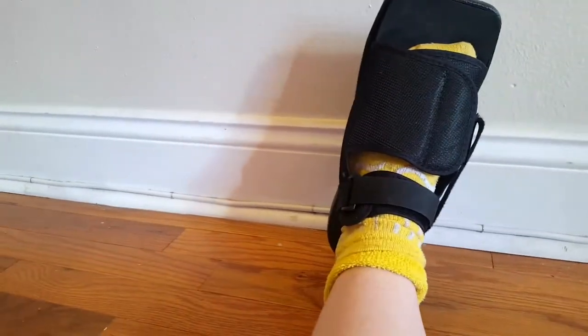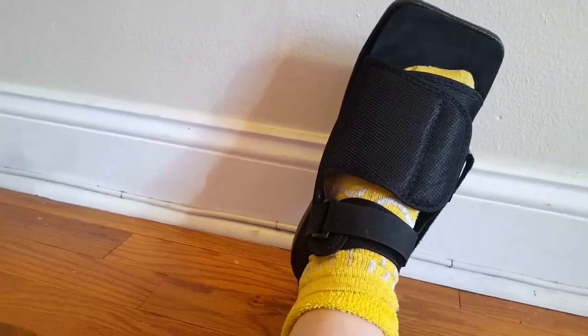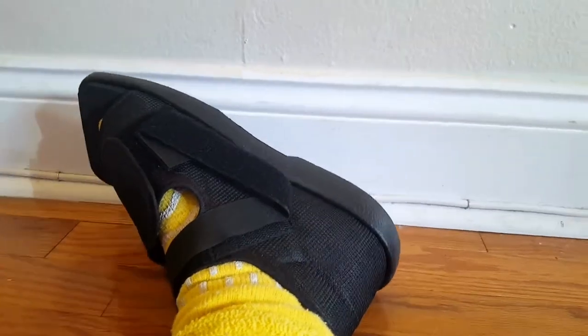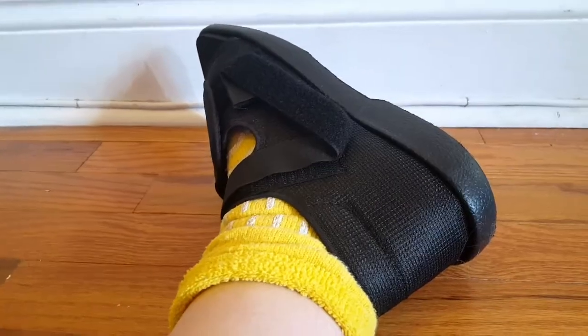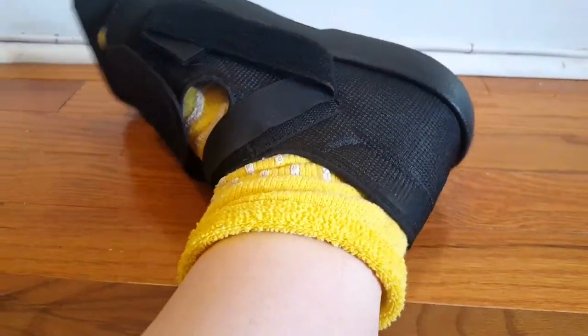The sole length of this one is about 11-something inches, so that's a pretty long foot. You only get one shoe when you order it — not a pair — so you have to order another one if you want one for both feet. It's black, and I have to wear this for four to six weeks, but just listen to your doctor and whatever they say.